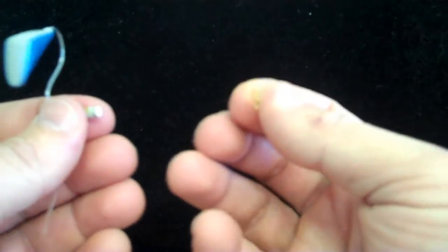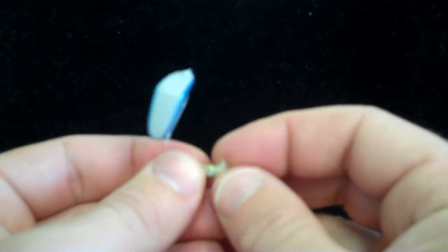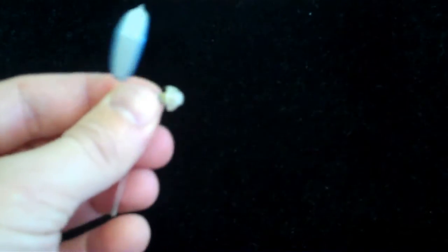The dome itself, just like the other product, we can scoop it out with the wire loop, poke a toothpick through it, whatever you like, and it just slides right back on the tip, right back on the end here.